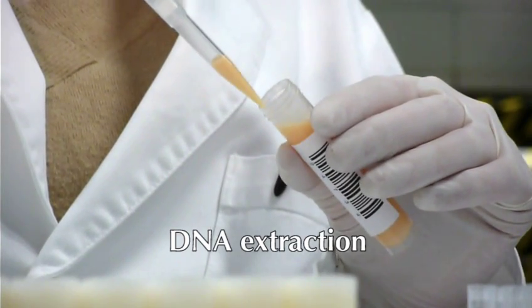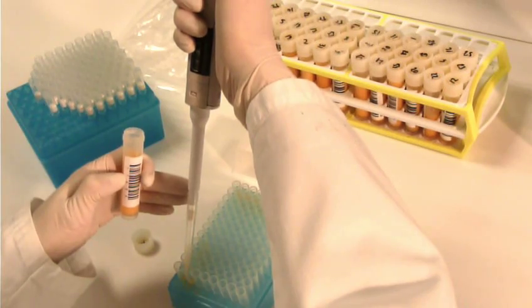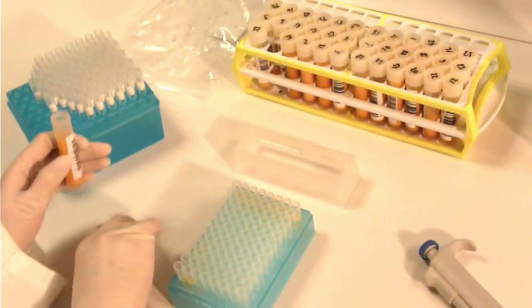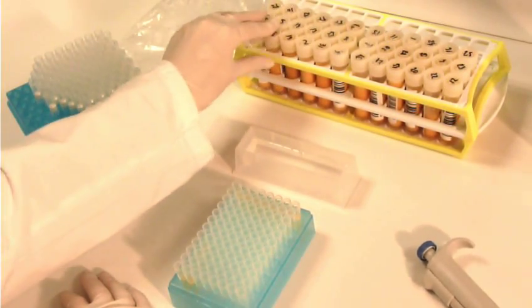350 microliters of fresh or preserved milk is used for mastitis testing with the Pathoproof Assay. The bacterial DNA in the milk sample is first separated from all other components, including proteins and lipids.